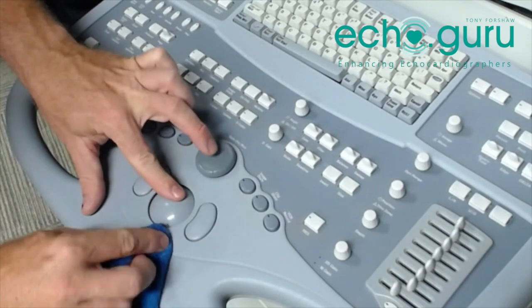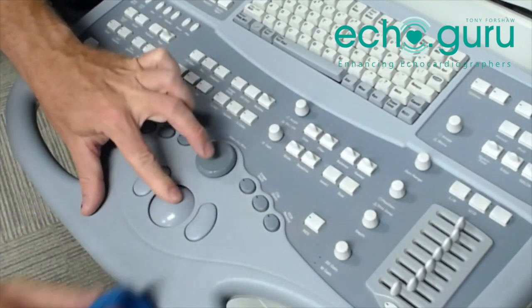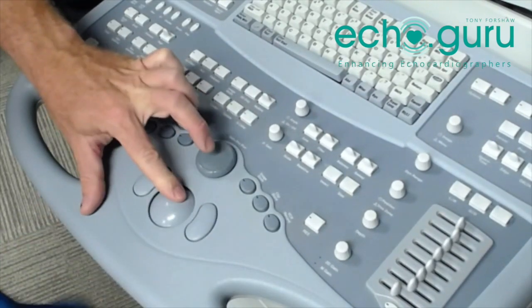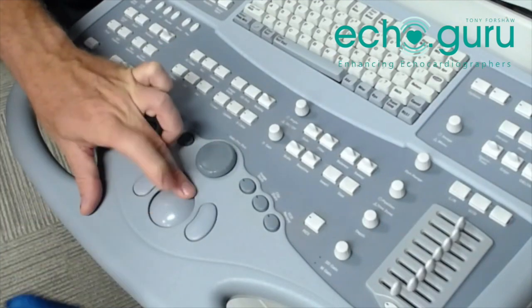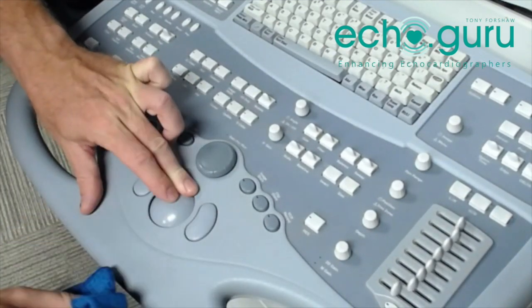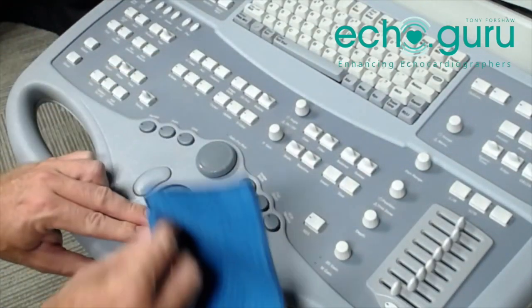You can see little bits caught in there — they're moving up as I roll the ball around. I always keep repeating this process until no more fluff is coming out. If you're still getting lint and fluff coming out while you're doing this, it needs more cleaning — you've got to keep going.